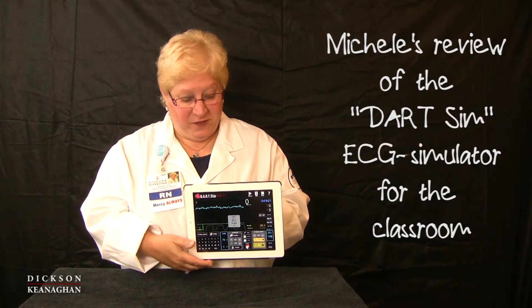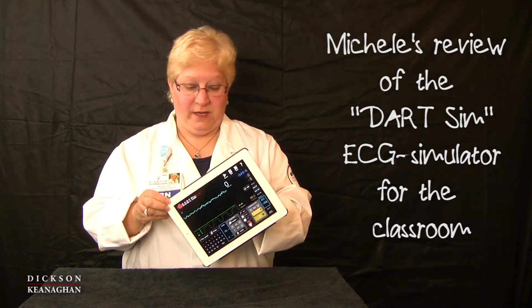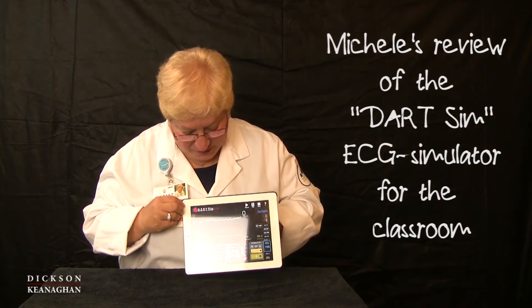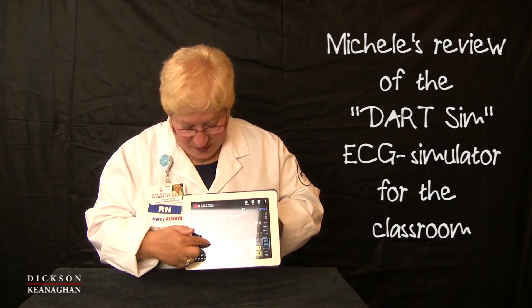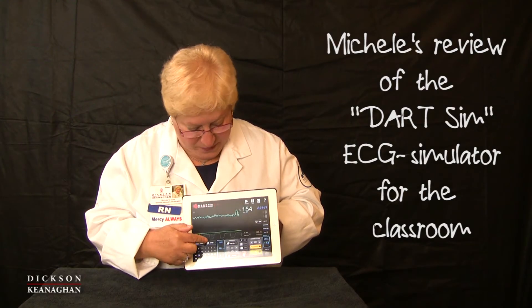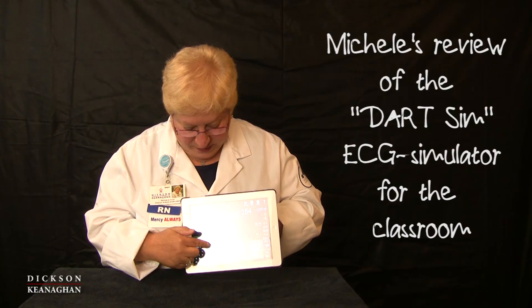What I've done to make this convenient for my classroom is I bought a cover that has a handle in the back, so I can simply do whatever I need to do and show it around the room. It has other features such as a synchronized cardioversion button if we were in a rhythm that required such treatment.